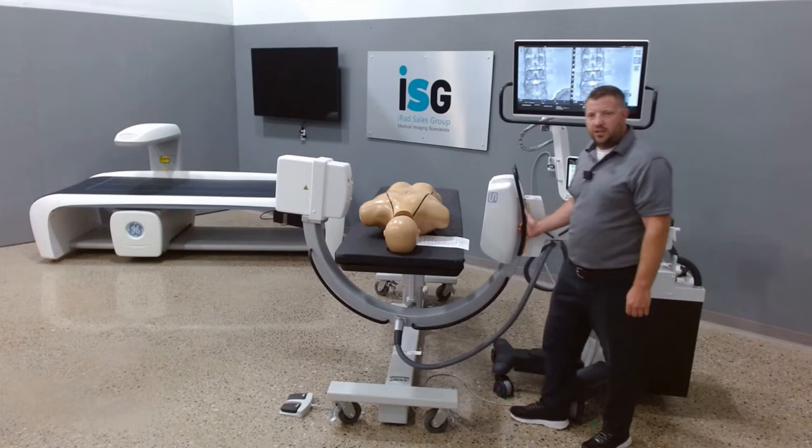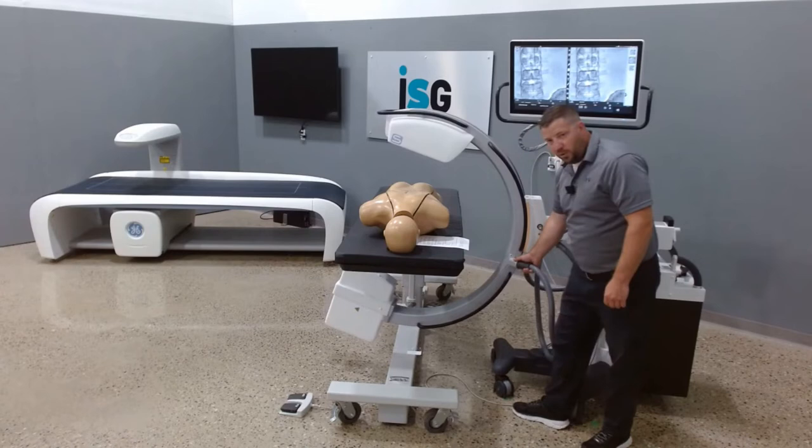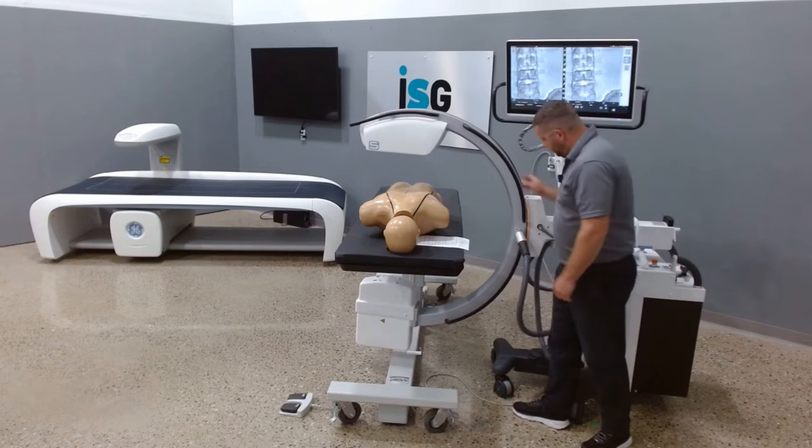When we re-rotate this again — pivoting umbilical cord. You see this moves here; on an OEC product these are fixed with high voltage cables. So this is a pivoting umbilical cord.